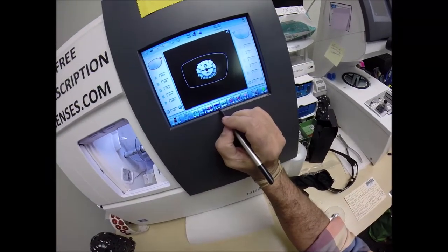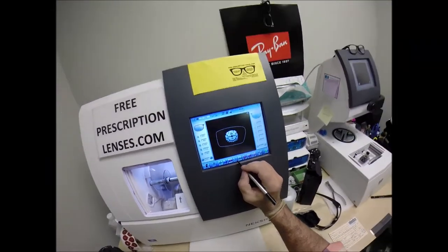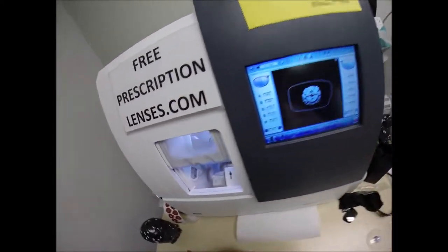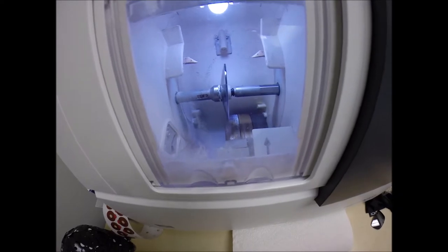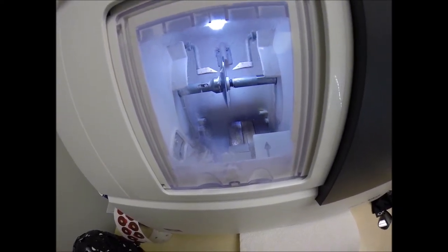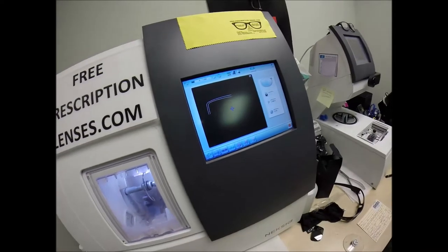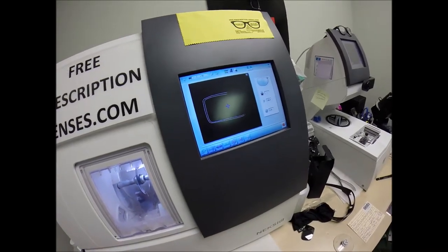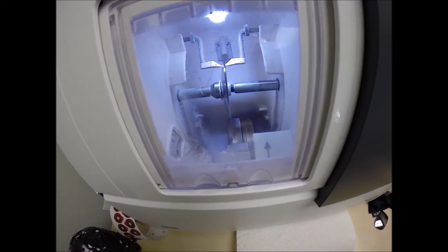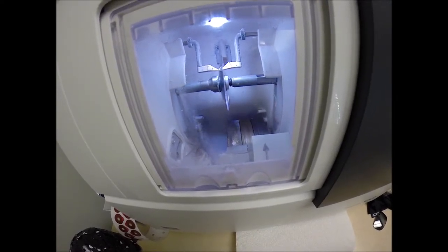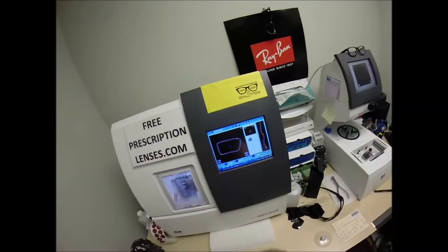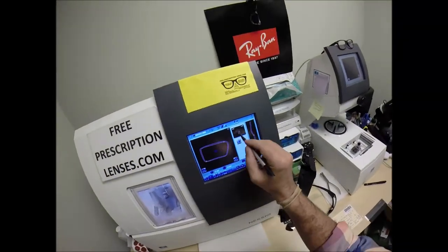The old carpenter saying: measure twice, cut once. It's measuring the thickness of the lens at every point to know where to place the bevel. Except I'm going to manually override that this time. I could do a percentage 50-50, but I'm going to do it on the curvature of the lens, on the base curve. I'm going to do that because of the wrap of the frame.